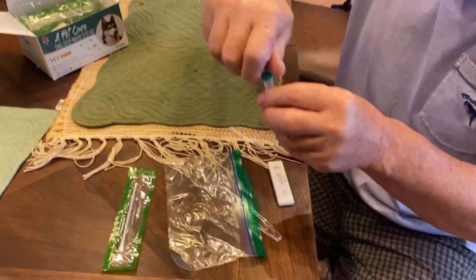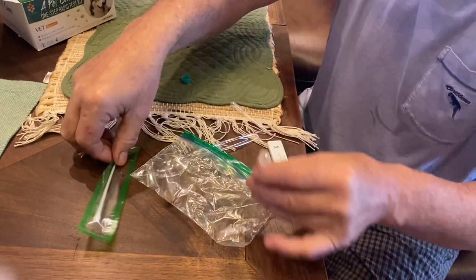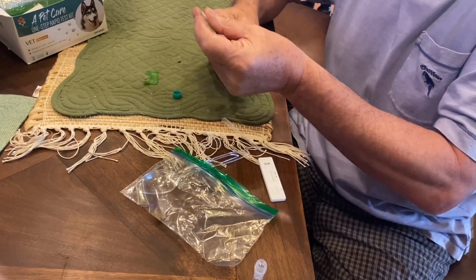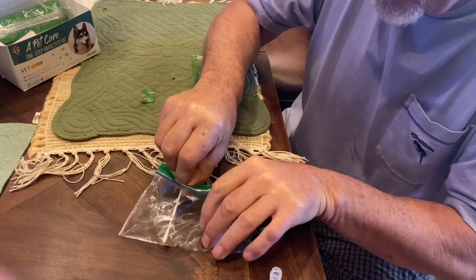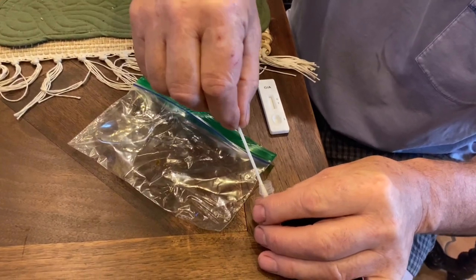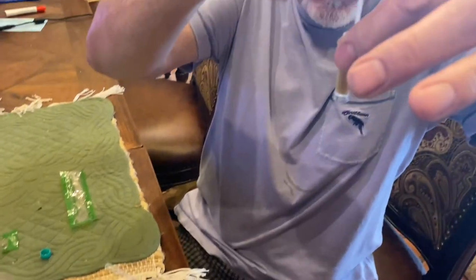So we've got to put some of this poop into the buffer tube. We're just going to use the swab to do it — there's a little swab included. We're just going to pick this up with the swab. Here comes the poop — there it is. I'm going to stick that in there. You can see — well, my big old fat fingers are in the way.